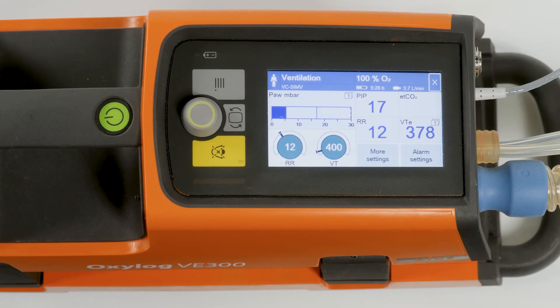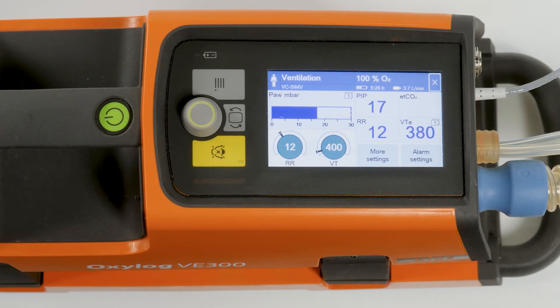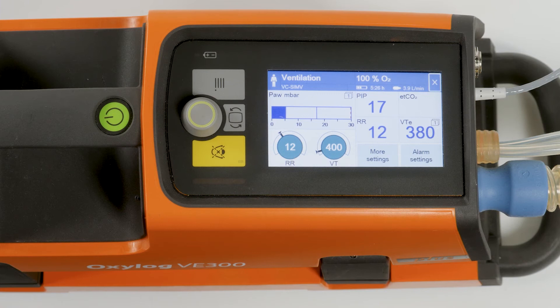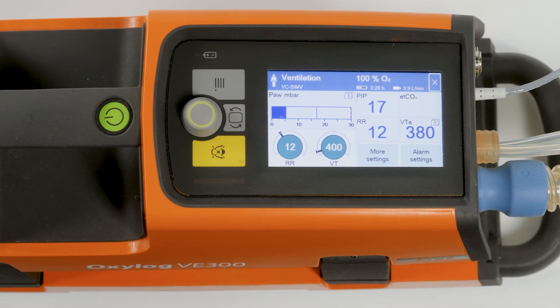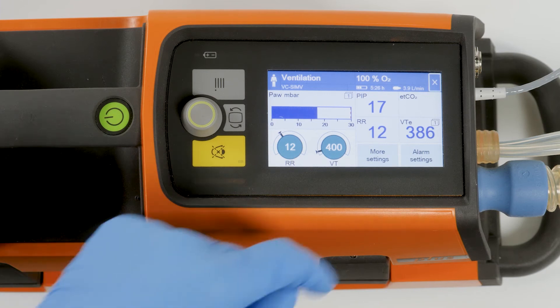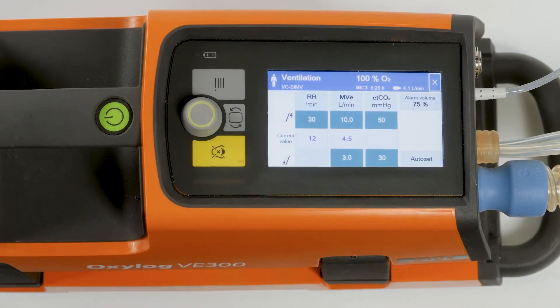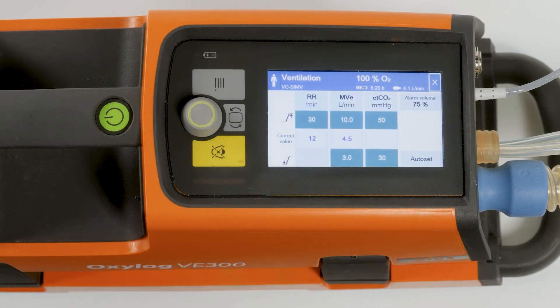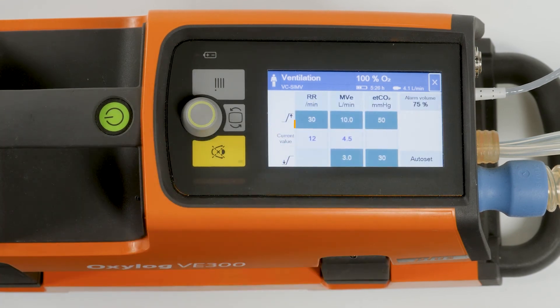To set the alarm limits for airway pressure, respiratory rate, minute volume, CO2, or alarm volume in operation mode, touch the alarm settings button. Depending on the selected options, the following settings can be made.